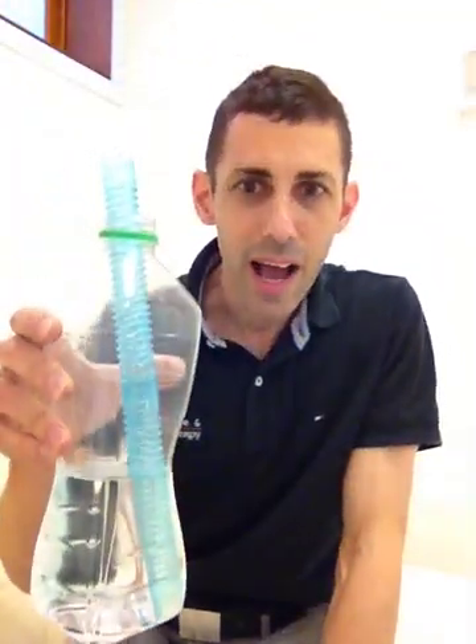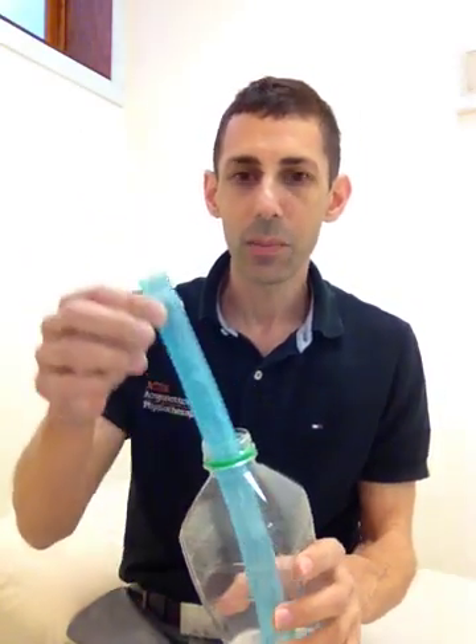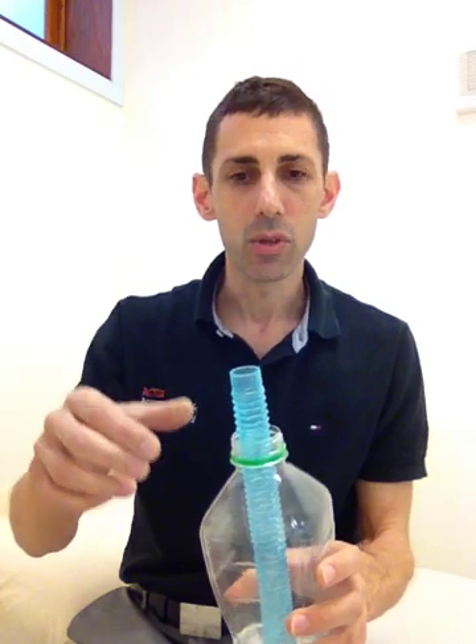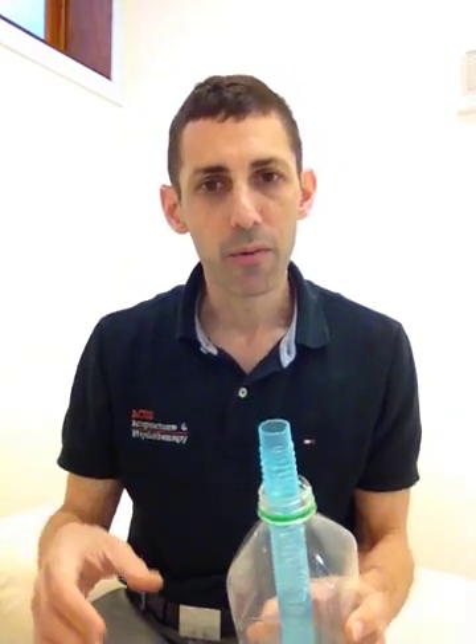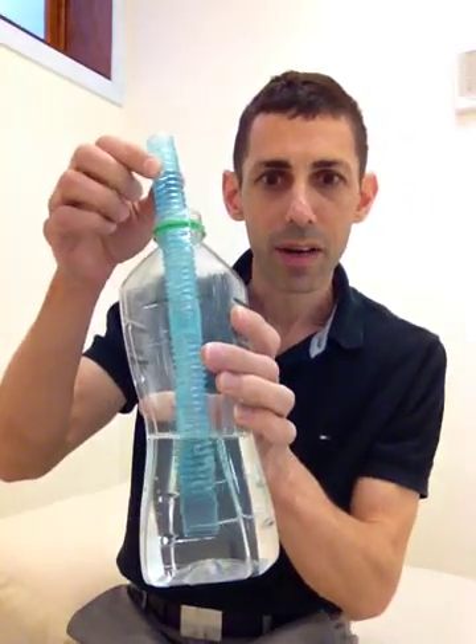But there's also one other way this can be produced, more as a DIY type scenario — a lot cheaper, a lot easier. And people call it bubble PEP. So what we're doing here — I have a set up with me right here now — is getting yourself a flask with about a third full of water and a large calibre straw. You can use probably something only as small as what you might find in a bubble tea cup because they're quite large, but this one's even better — a nice large calibre tube going into a flask of water.